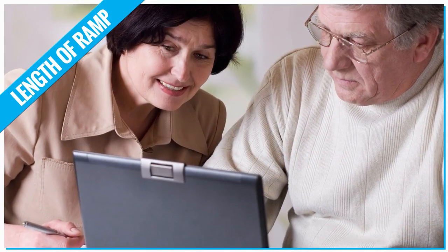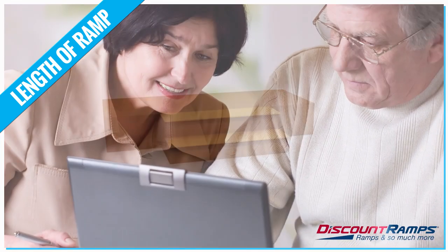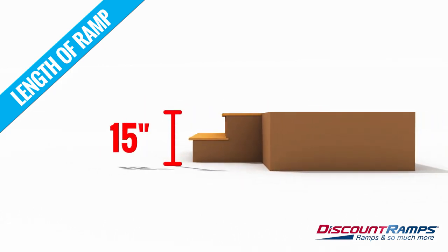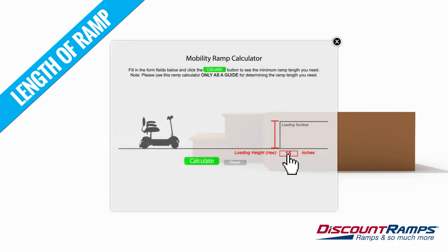The length is extremely important. It will determine how safe and easy to use the ramp will be. Start with finding the height of the rise. The rise is the vertical distance you are traveling. You can then input this number in inches into the mobility ramp calculator found at discountramps.com.